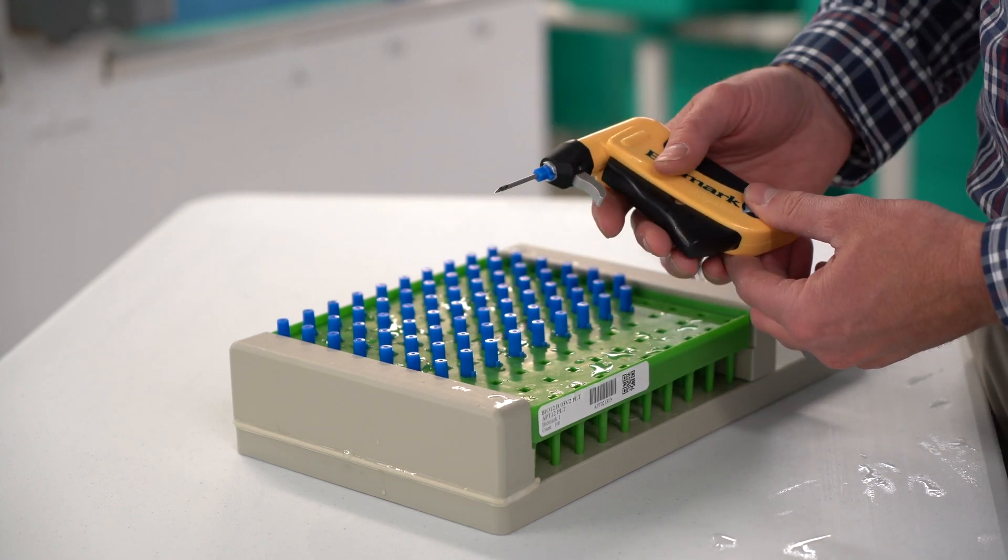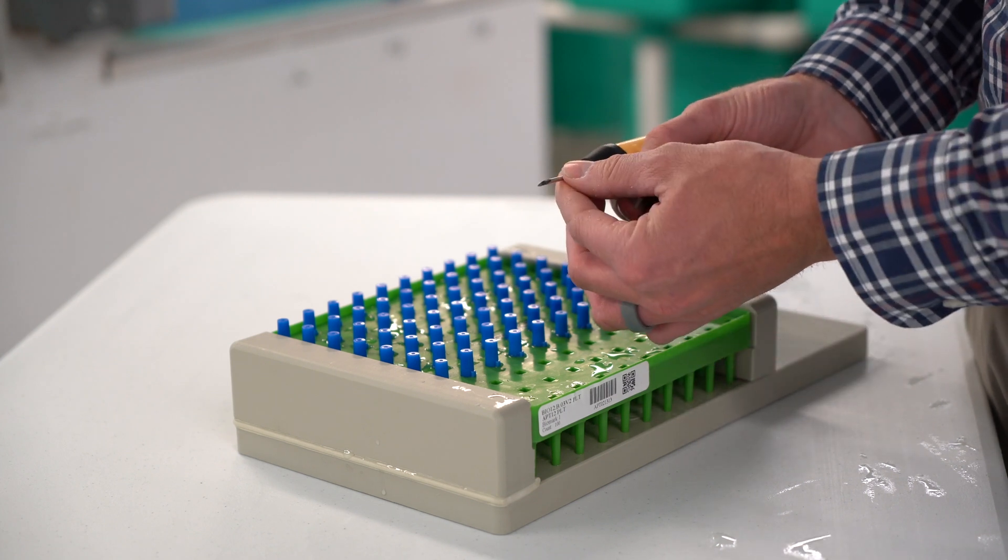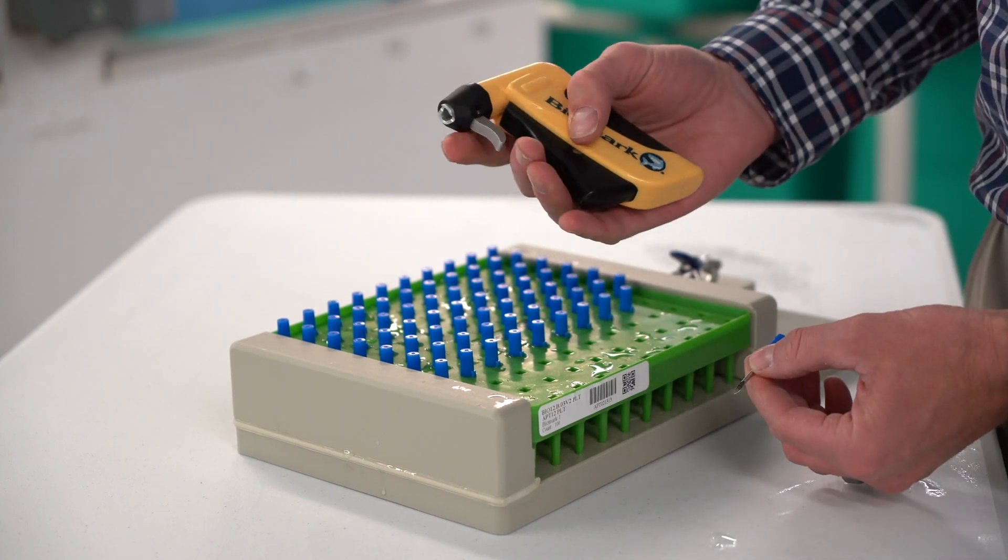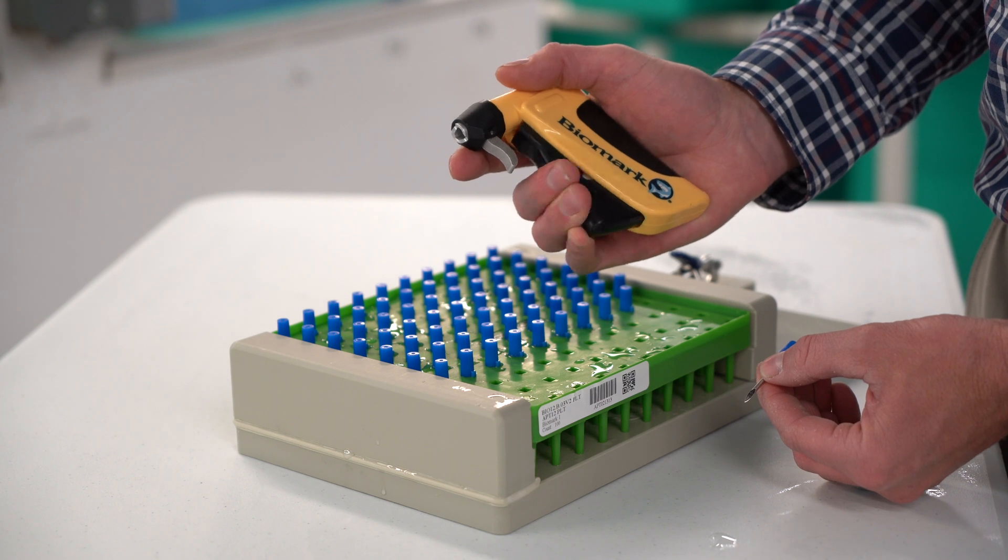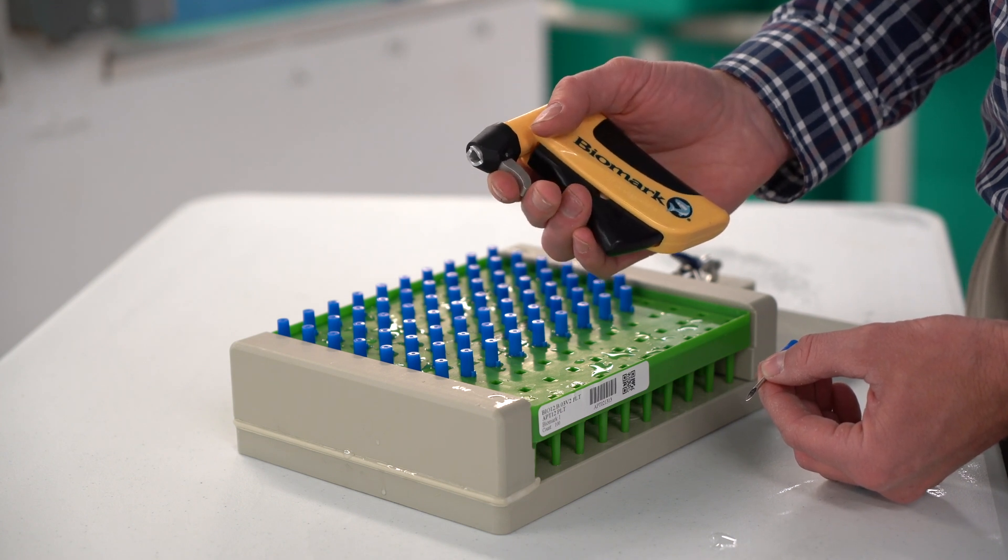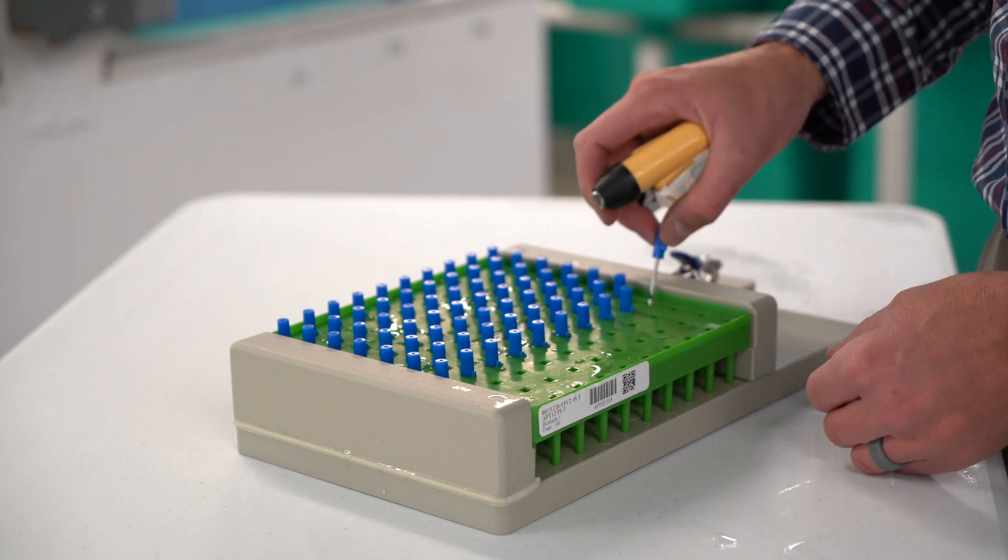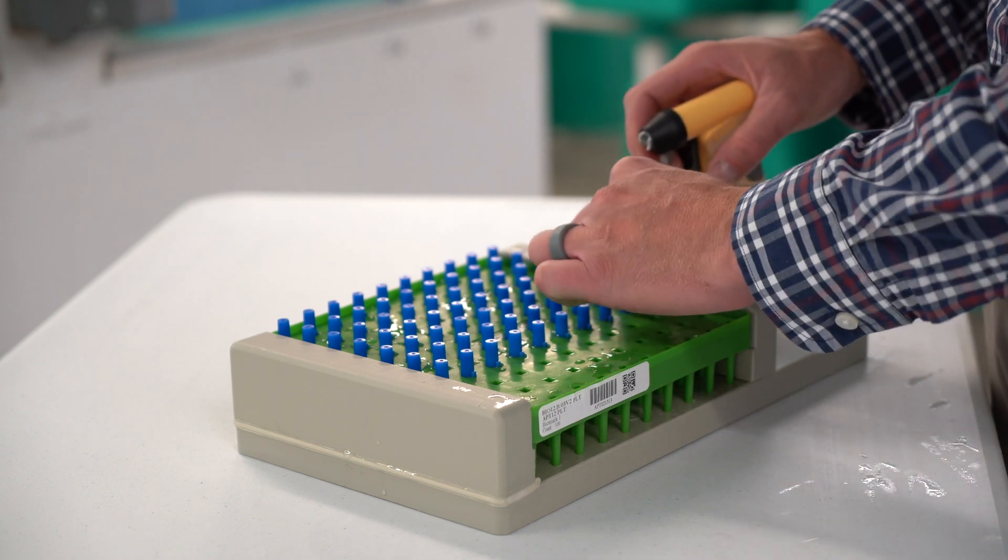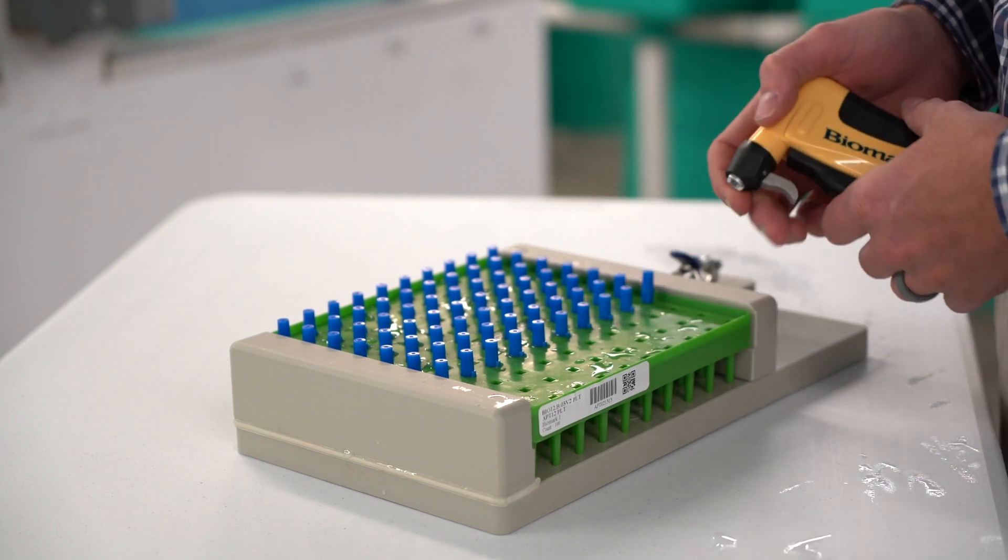The MK25 implanter features a stainless steel pushrod. This pushrod contacts the plastic pushrod in the needle, moving the pit tag past the silicone bump. This ensures the pushrod from the MK25 implanter does not touch the individual, preventing disease inoculation if this is a concern.